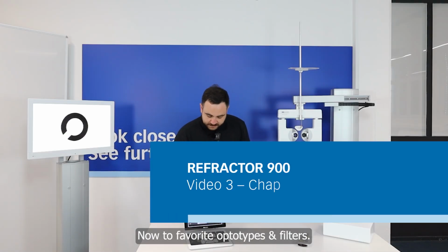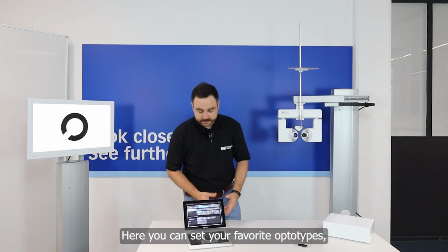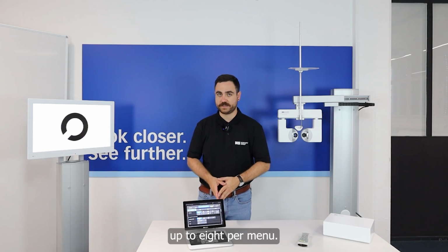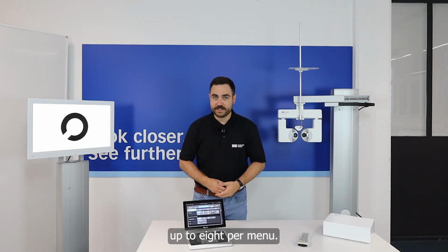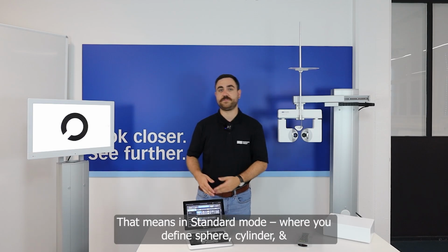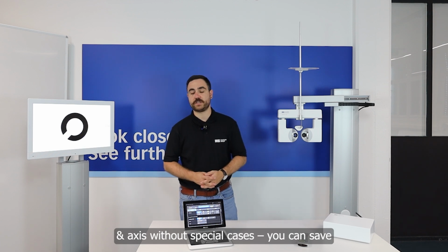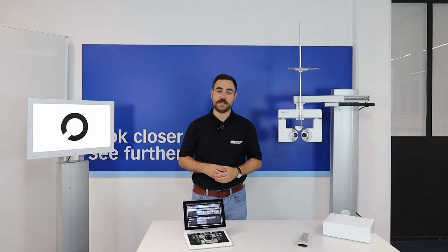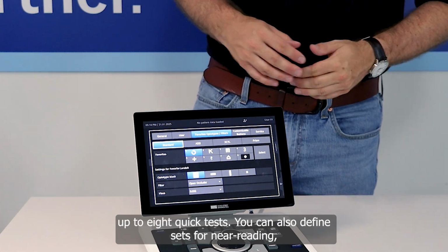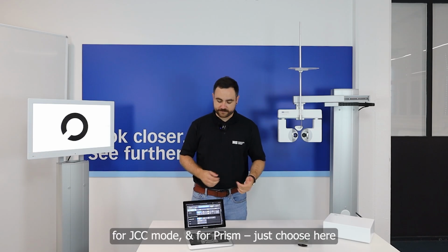Now we came to the favorite optotypes and filters. Here you can set your favorite optotypes. Up to 8 is a possibility, but in each menu. So that means if you are in the standard mode where you define the sphere and cylinder and axis without using special cases, you have the possibility to use up to 8 quick accesses. But that you also can define for near reading, for the cross cylinder mode and for the prism.